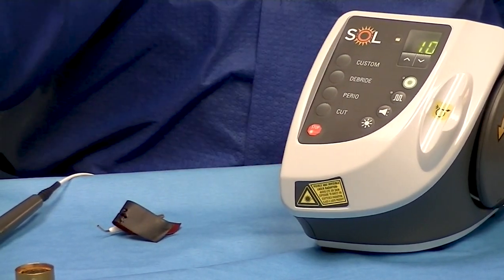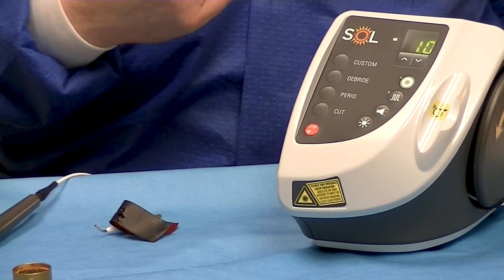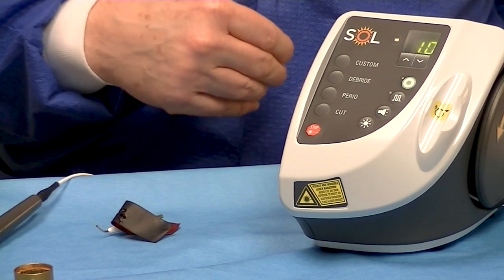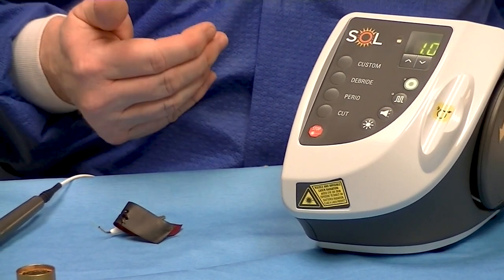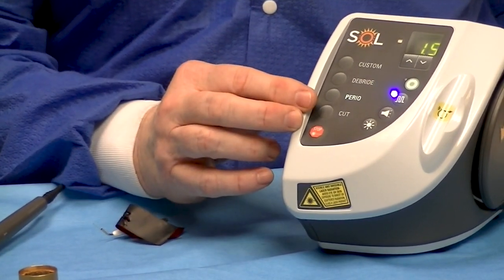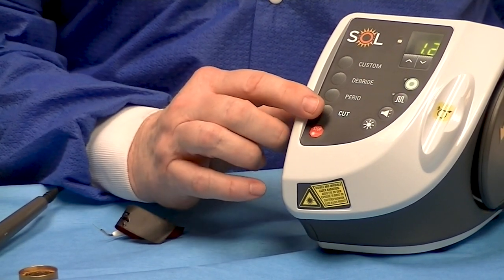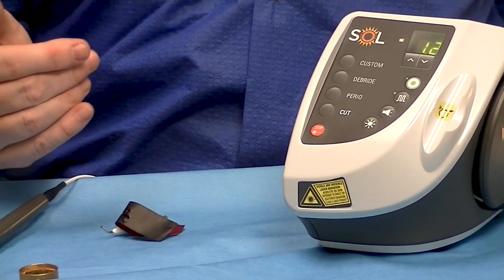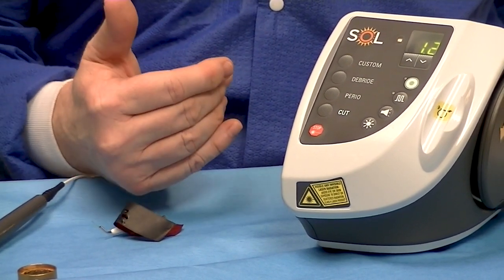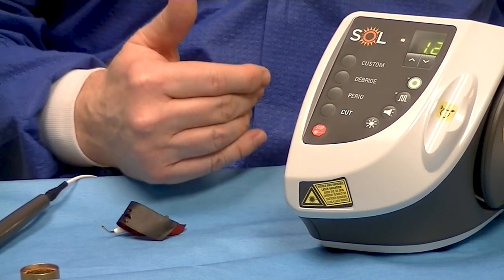In Perio and hygiene, we're not really cutting the tissue, so we're not going to activate the tip whatsoever. If you are in a pulseless mode, the wattage will be a little bit less than a pulse mode. We have a Perio setting for our various periodontal therapies, and then finally a cut setting, which will be activated in a continuous wave mode, and that will allow us to cut efficiently as we are troughing the tissue.